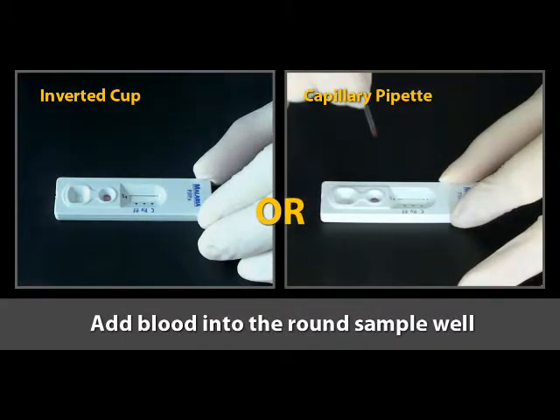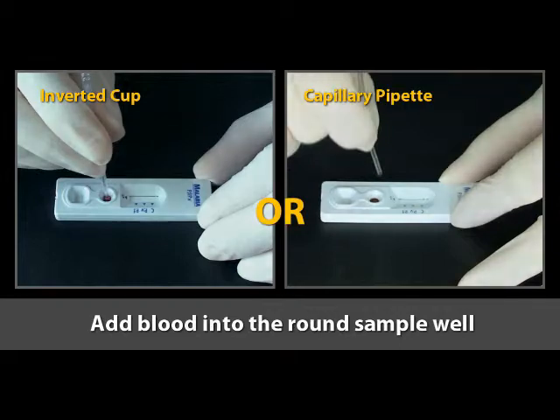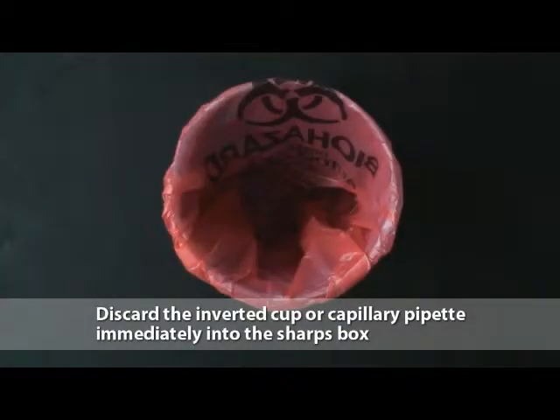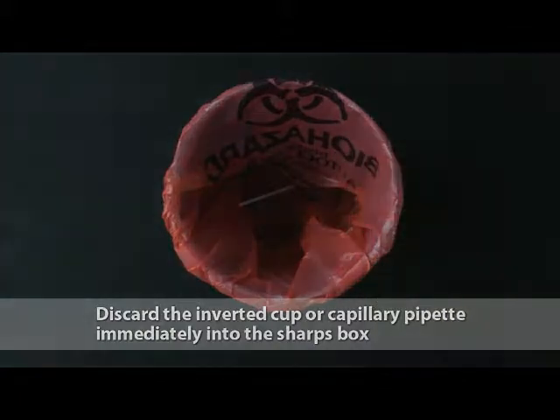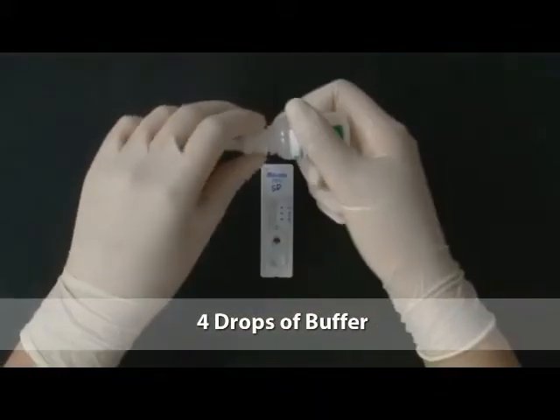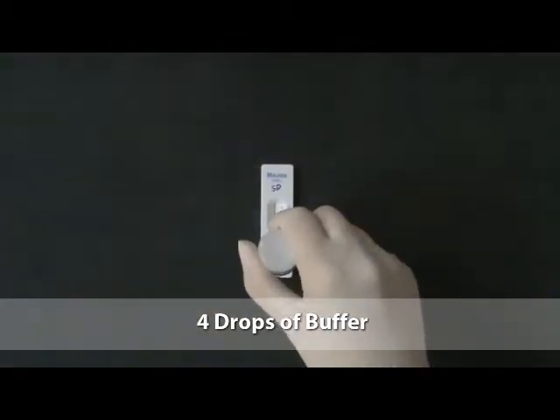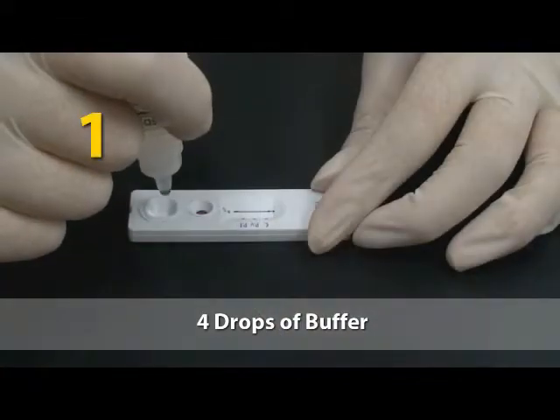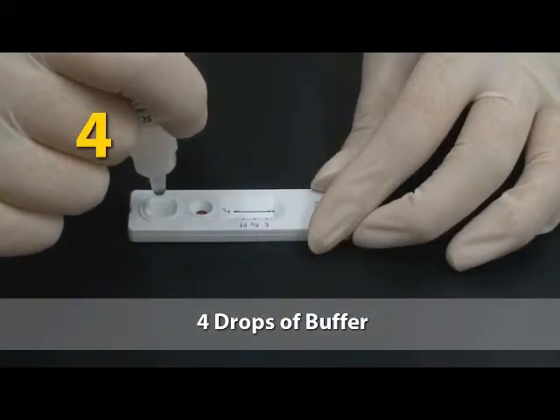Add 5 microliters of drawn blood into the round sample well, touching the sample pad. Discard the inverted cup or capillary pipette immediately in the sharps box. Add 4 drops of buffer into the square buffer well. One, 2, 3, 4.